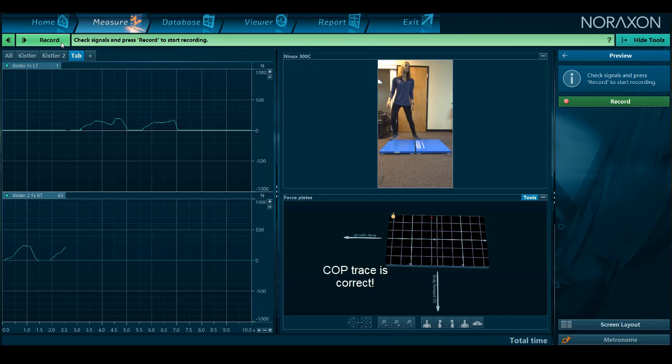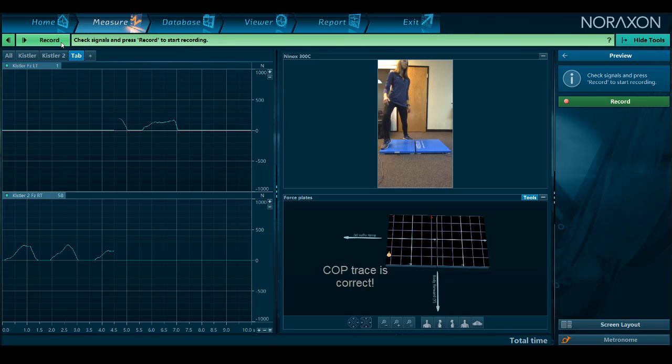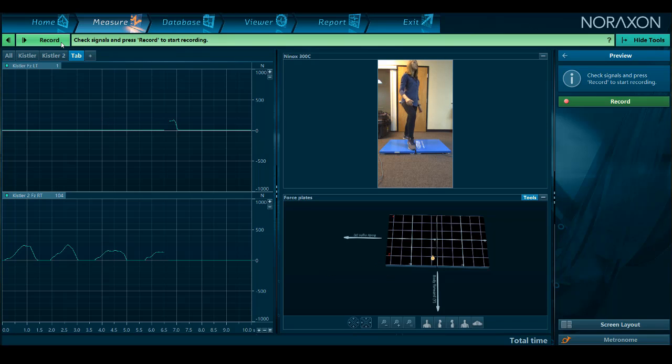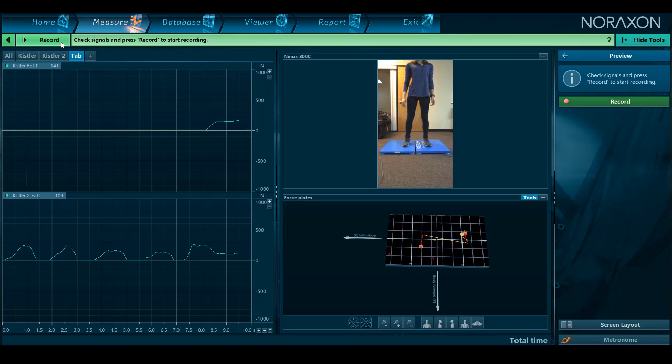For example, in this situation, we will flip the left plate to the negative y-axis pointing forward because the edges appear in the opposite position we expect.